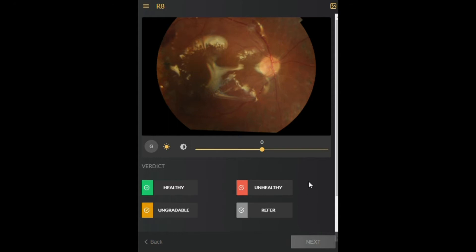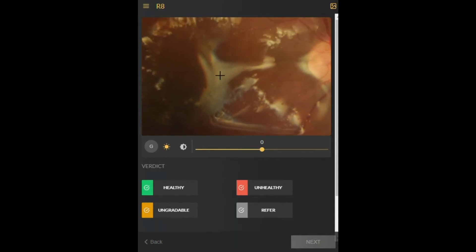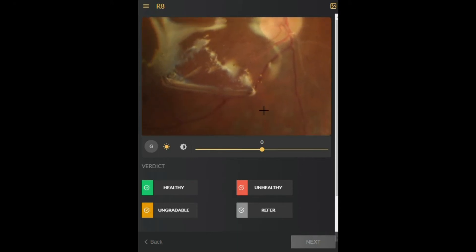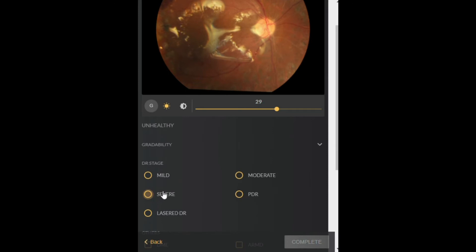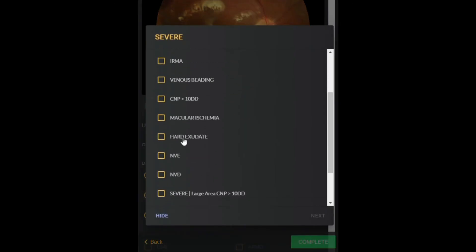This led us to develop our own in-house image annotation tool. As seen in the video, adding an annotation for an image is pretty easy: view the image, magnify it, change the brightness, change the contrast as needed, click on the relevant options, choose extra details, and the annotation is saved.